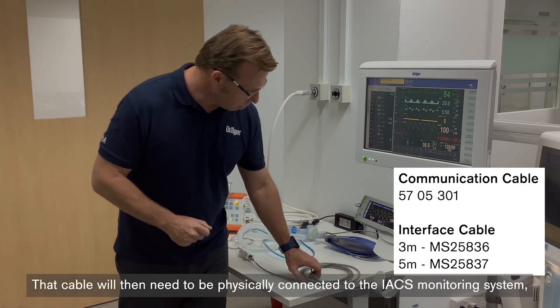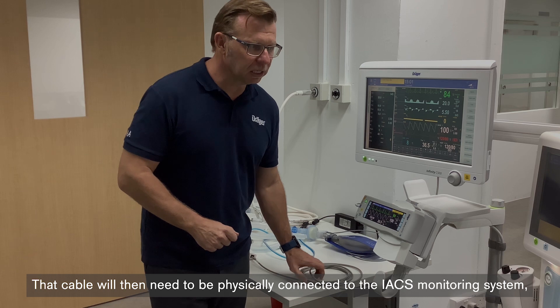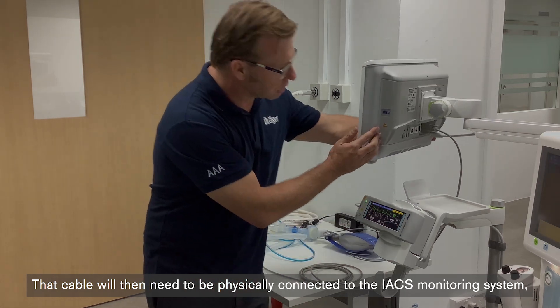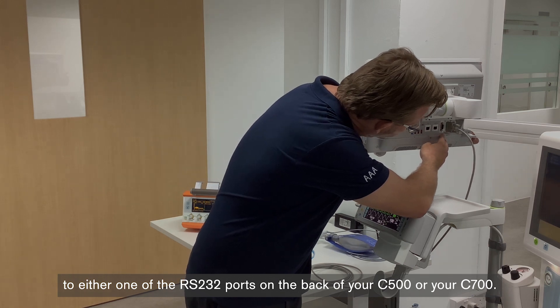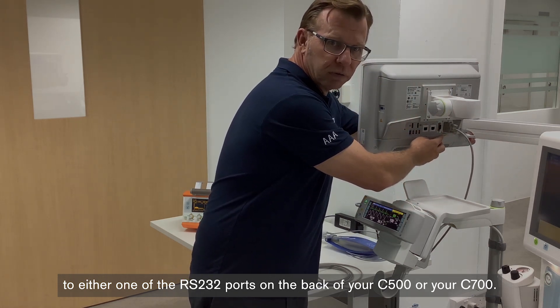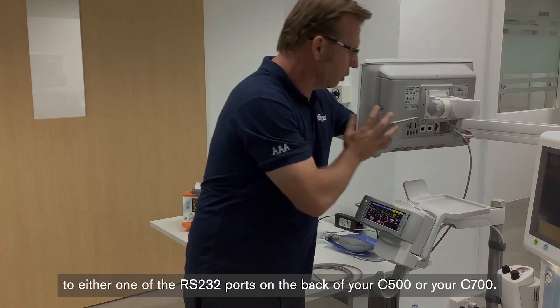That cable will then need to be physically connected to the IACS monitoring system, to either one of the RS232 ports on the back of your C500 or your C700.